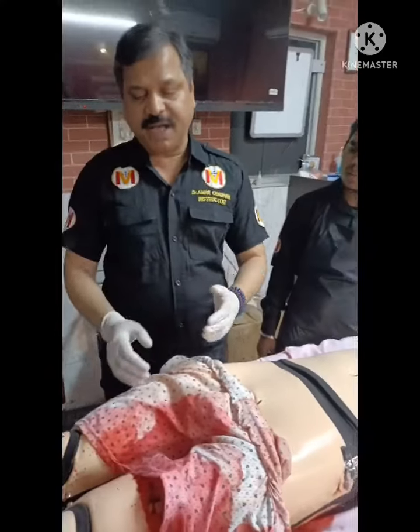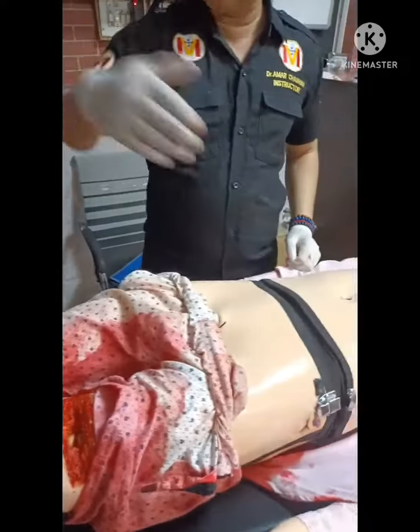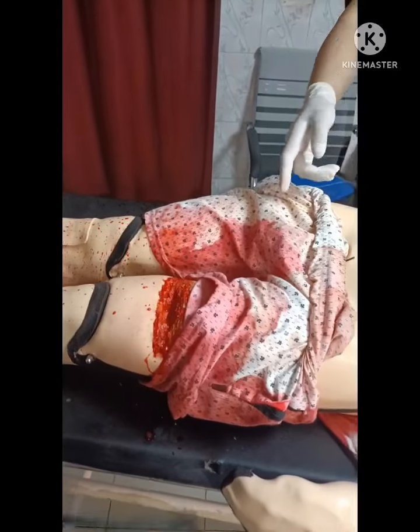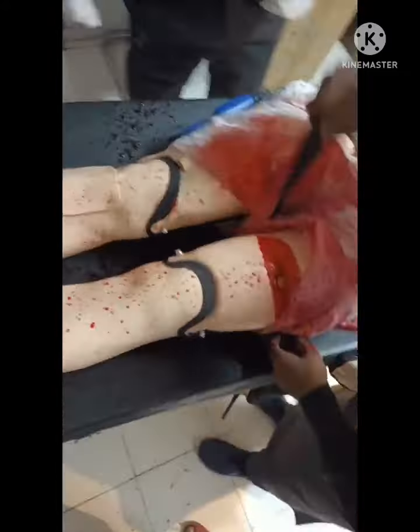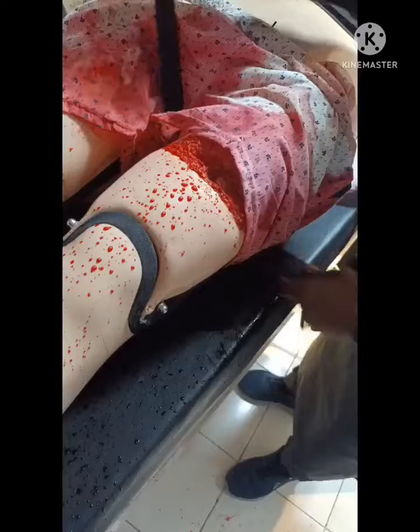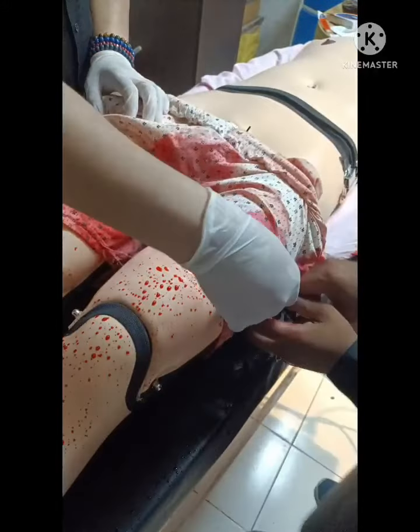To show the catastrophic hemorrhage, it has a fracture of the thigh bone, and then you show how to apply a CAT tourniquet. If we switch on this button and go to that side, you will see there is bleeding. This is how you can demonstrate a catastrophic hemorrhage, and then stop it. You can teach students how to apply a CAT tourniquet. This tourniquet is designed by us.